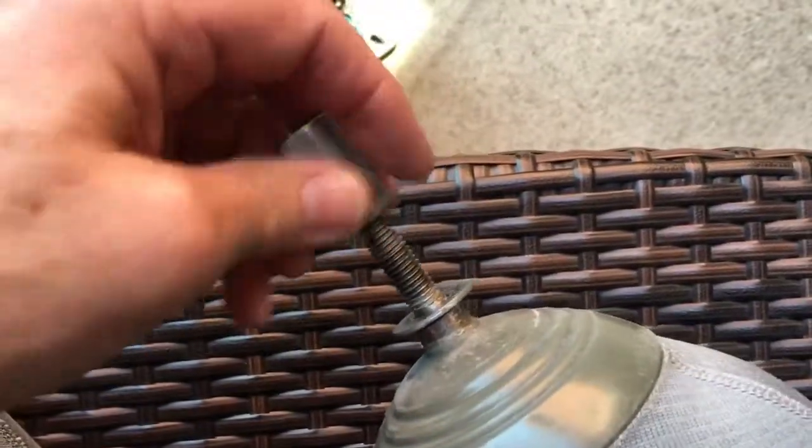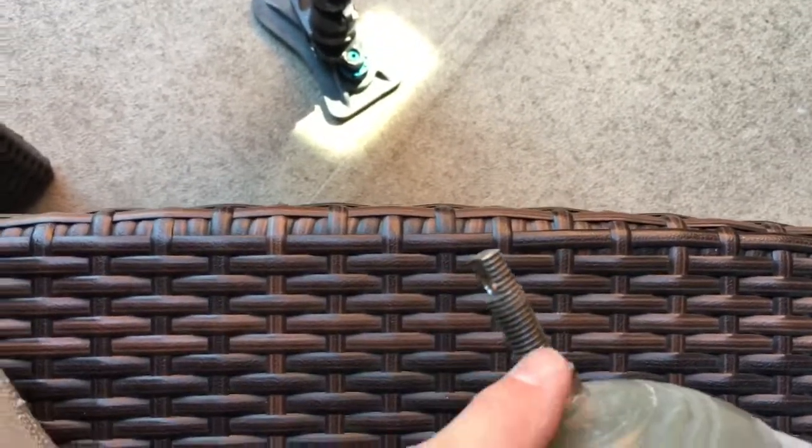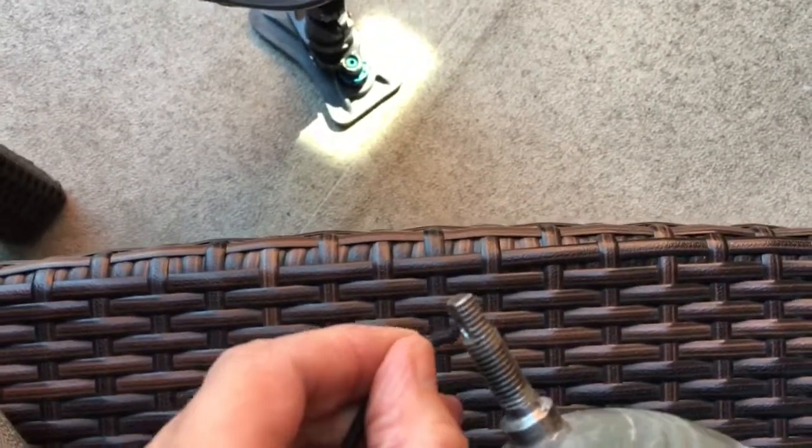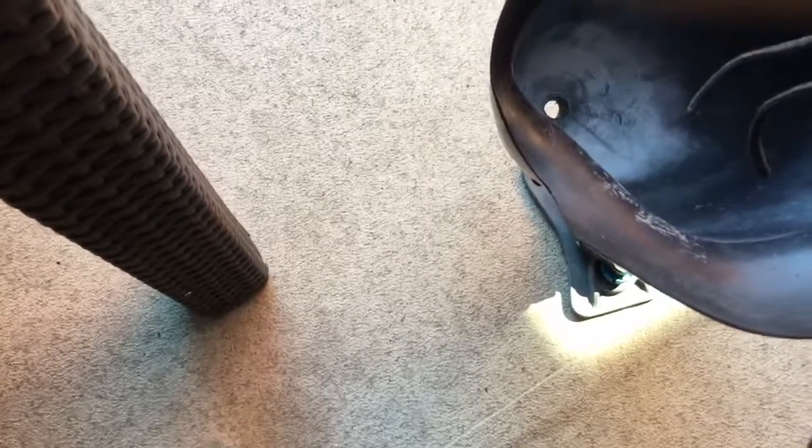The way that I put them on is the same as usual. I use the gel — I've got a gel liner and I've got a system here. I haven't shown you guys this for a long time, but it's a little bit different. What I do is this is a pin replaced with a custom made bolt, and what happens is I run a piece of cordlet through there. I'm not going to be able to do this with one hand, but the cord gets passed through there.